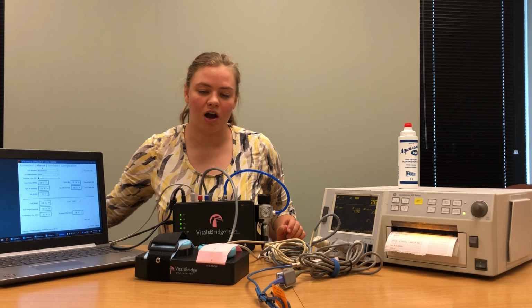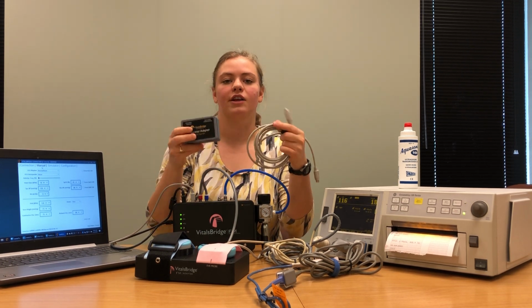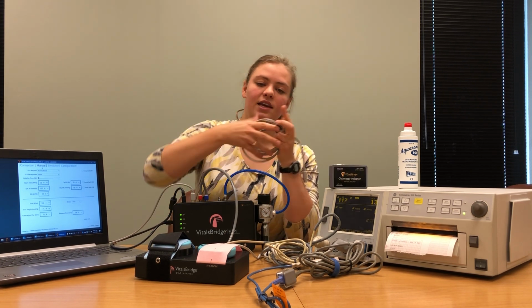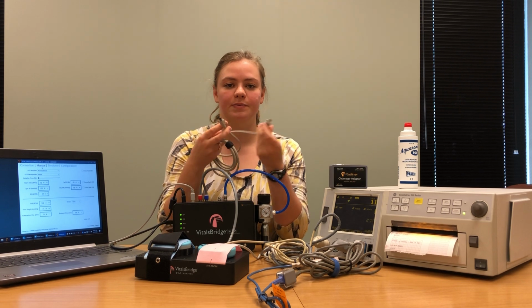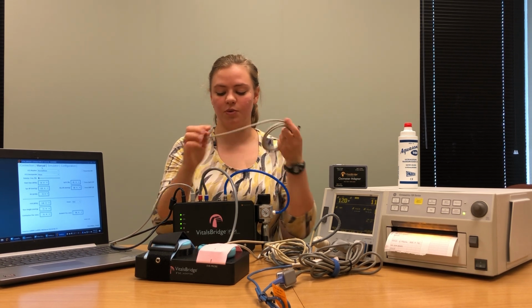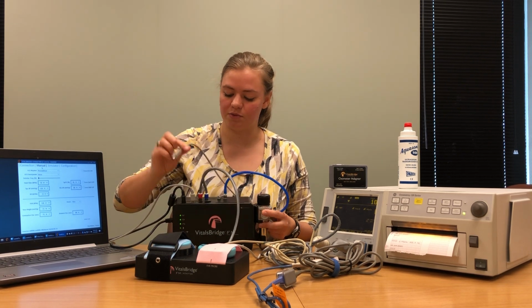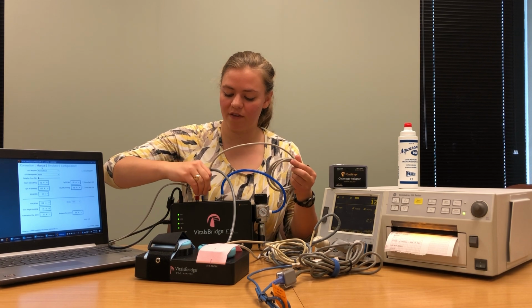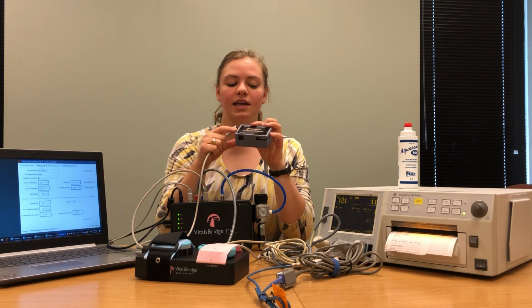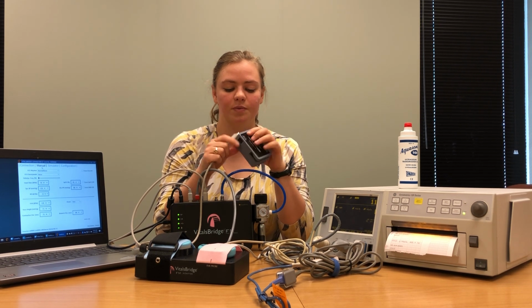We're next going to pull out our SPO2 oximeter adapter, which was included with our VitalsBridge. It includes this box here and a cable that has two matching ends. Take one end of the cable and plug it into the VitalsBridge where it says SPO2. The port is here on the VitalsBridge. Once you have that plugged in, take the other end of the same cable and plug it into the oximeter adapter box where it says SPO2 port VitalsBridge.